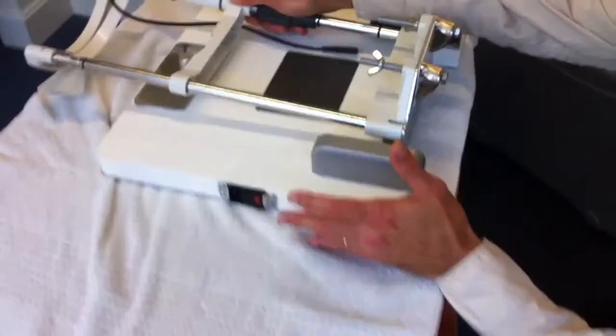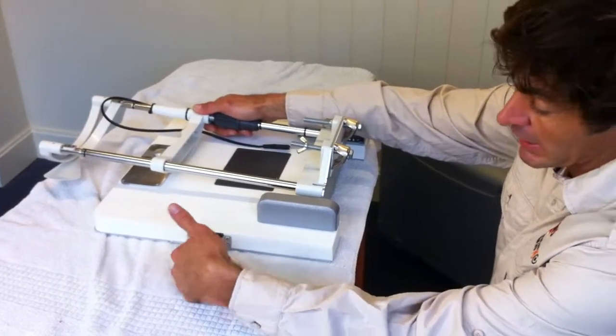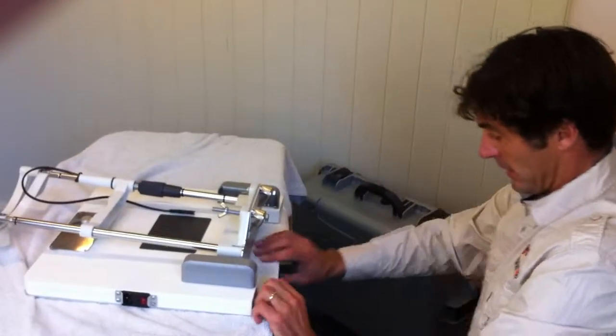The way it works is: it's folded up inside the box, there's your power circuit, and any old jug lead — any old computer lead — will do to go into that. Straight in there, you've got your on/off switch. Basically, you need any table.